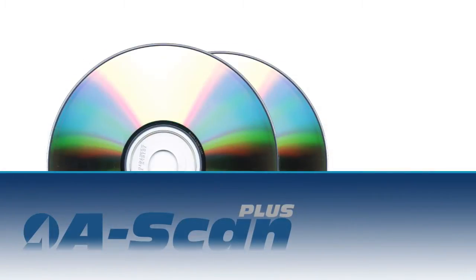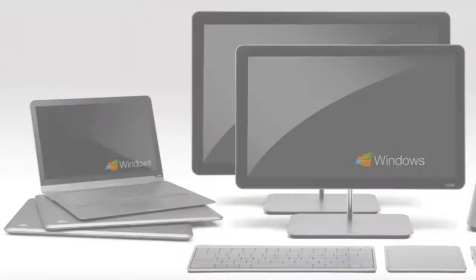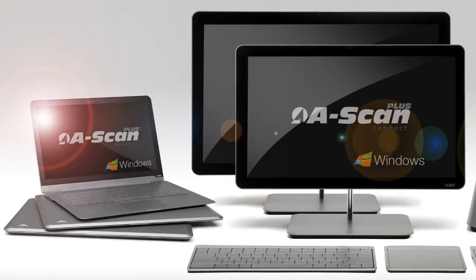Open the software installation package and follow the instructions that are provided in the packet. Please be sure you're following the appropriate instructions for your computer specifications.